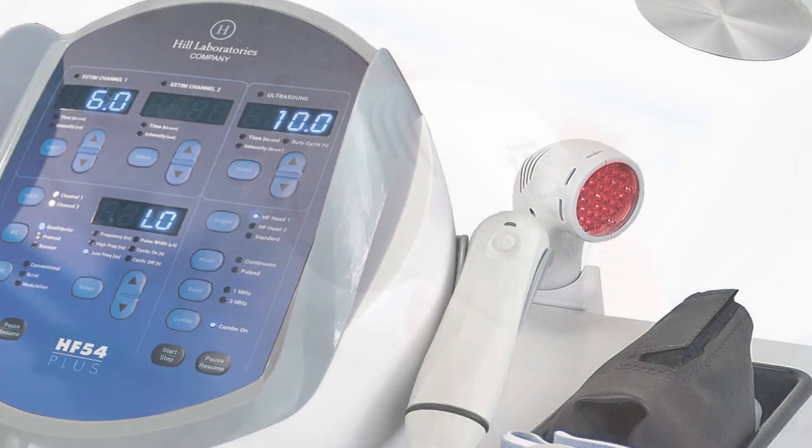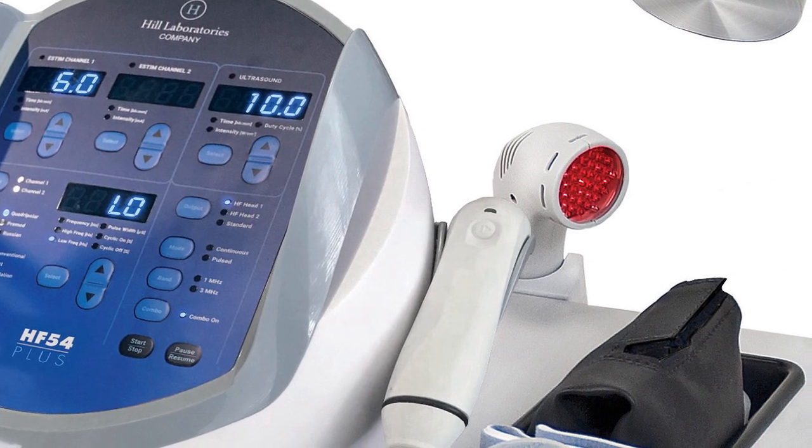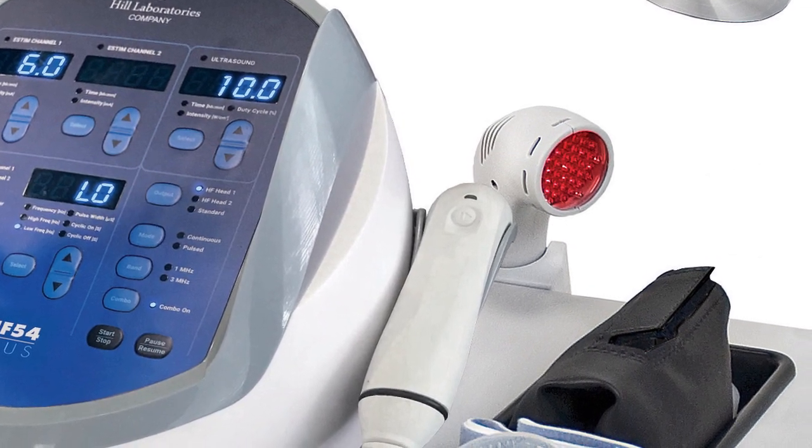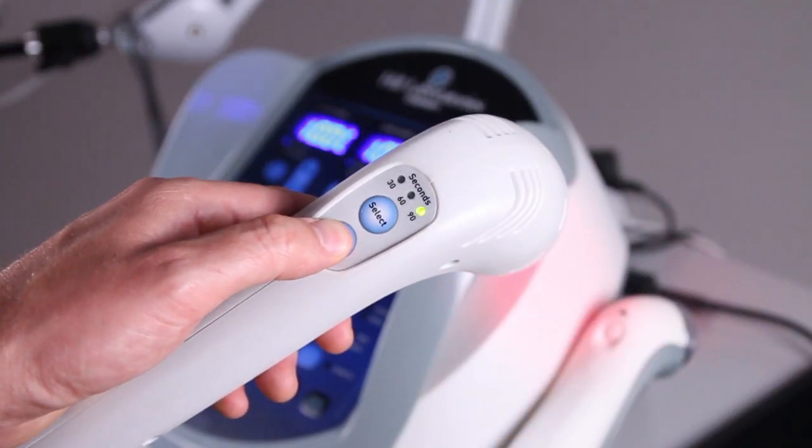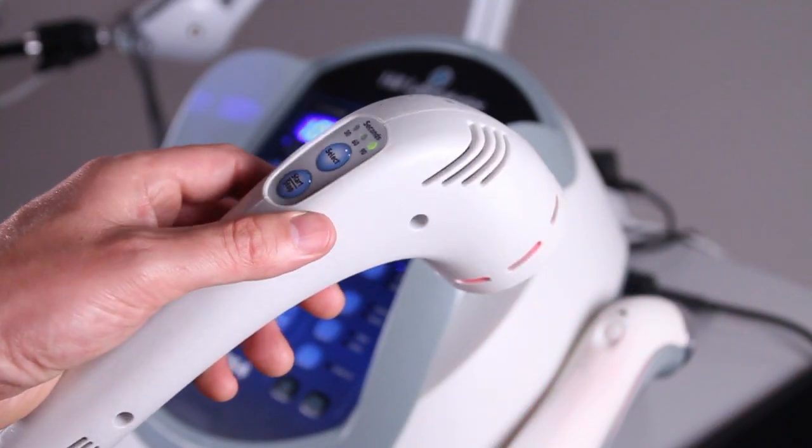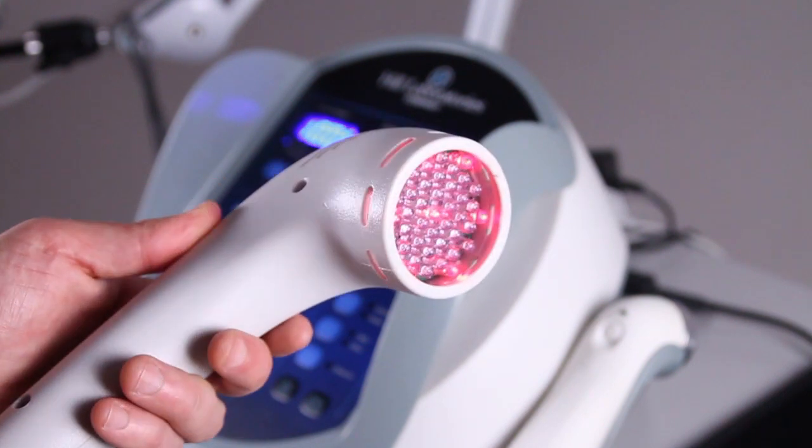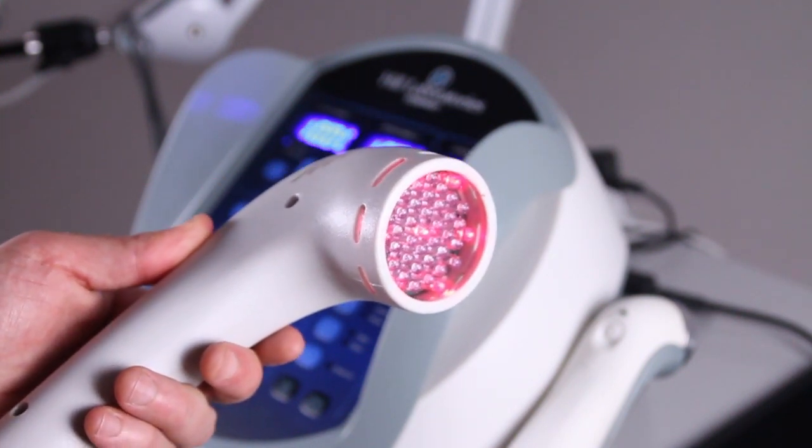The optional Horizon Light Therapy unit plugs directly into the HF54 Plus and mounts to the tabletop for easy access. It features a powerful 800 milliwatts of infrared and red light with 36 infrared and 7 visible red light super luminous diodes.